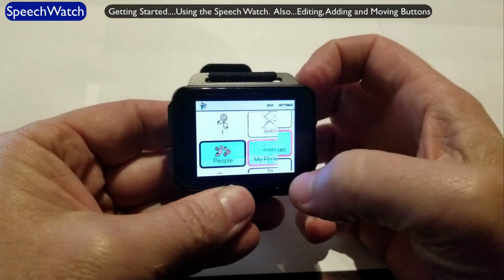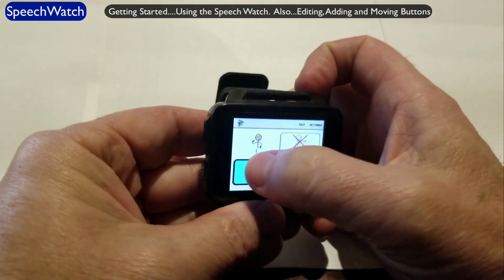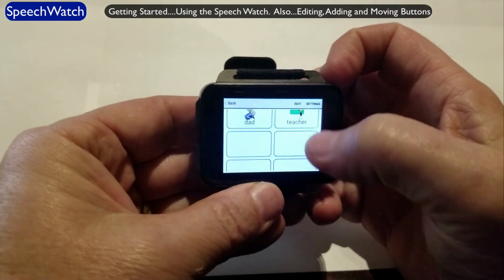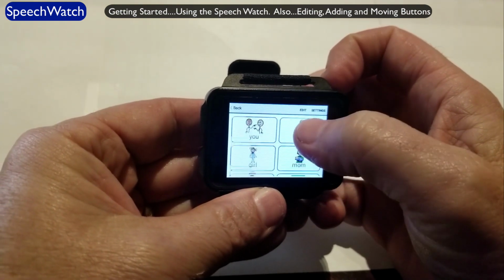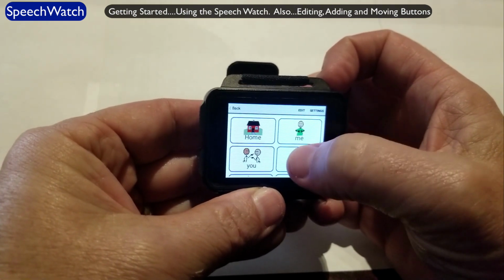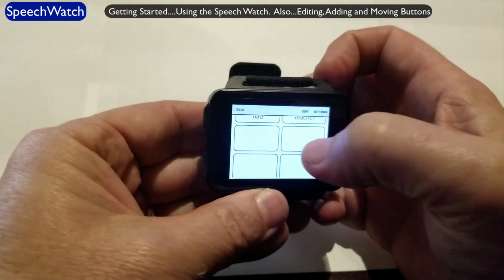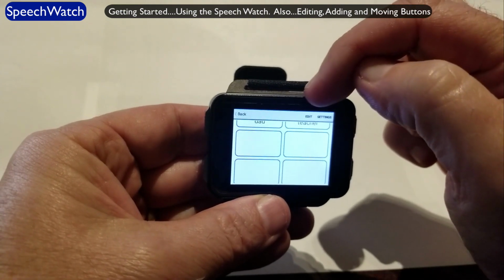Now let me show you how to edit a button. And I'll go into People. There's all these buttons in here. And let me edit a button just to show you how it works. Well, let's take this button here, one of these blank ones. I will edit one of those. To edit one of the buttons, I touch Edit in the very top here. You see it on the menu.